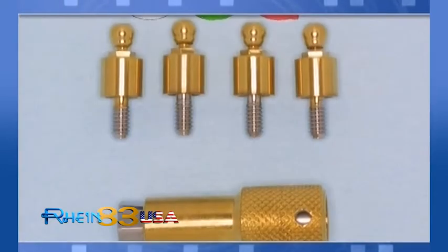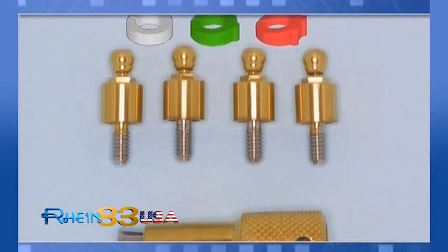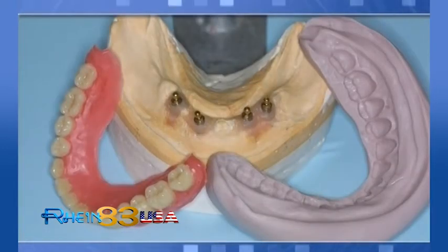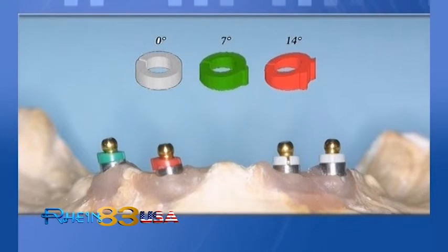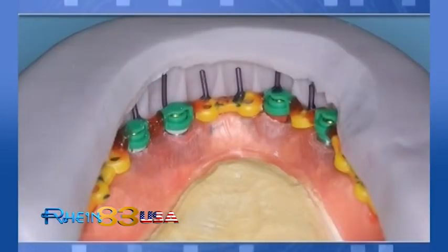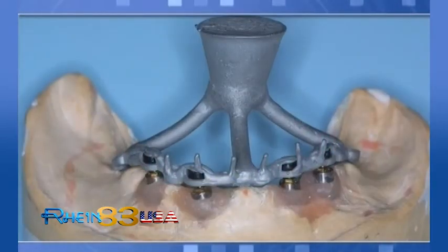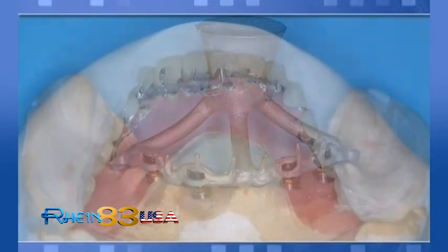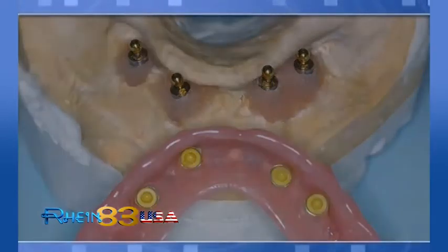Lab procedures. After the denture with waxed mount has been tried in the patient's mouth, make a trial mask on the model in order to check spaces available to work. Using OT box castable components assembled together, it's possible to create cast reinforcements directly on master models without the need of investment duplication. Use of the trial mask helps to fix rotative pins in proximity of frontal teeth. The metal box for retentive caps is cast together with the reinforcement structure using the OT box castable system to contain caps for optimal retention, elasticity, and mechanical performance.